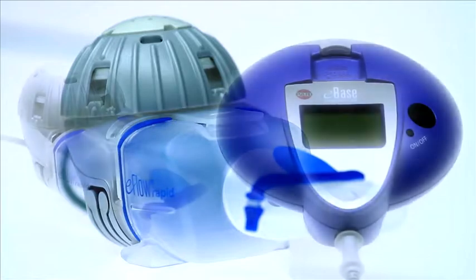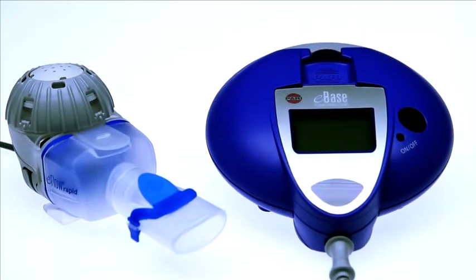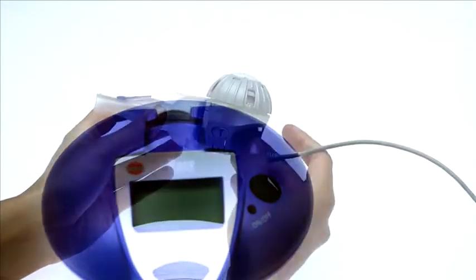To do this, disassemble the nebulizer handset into its individual parts and place them all on a clean, absorbent surface.